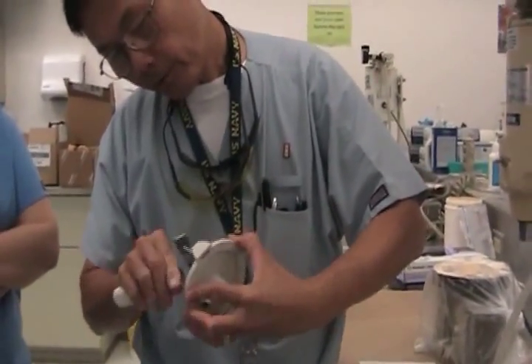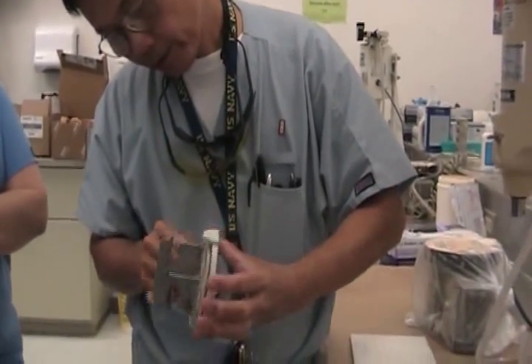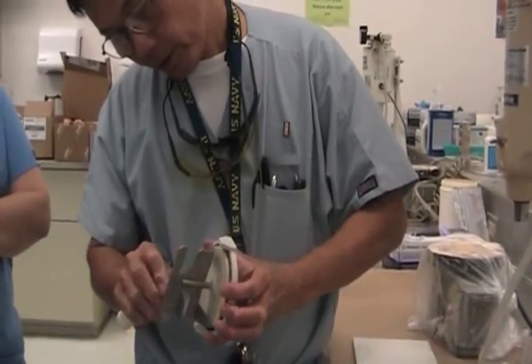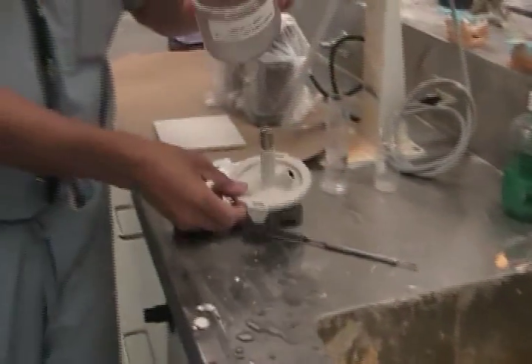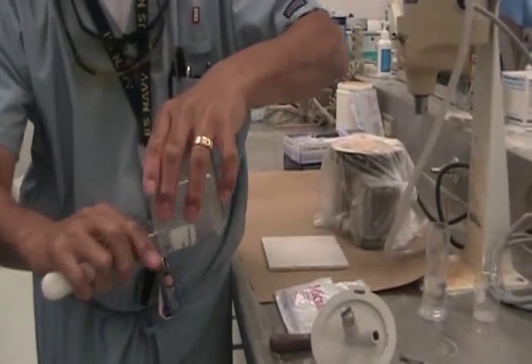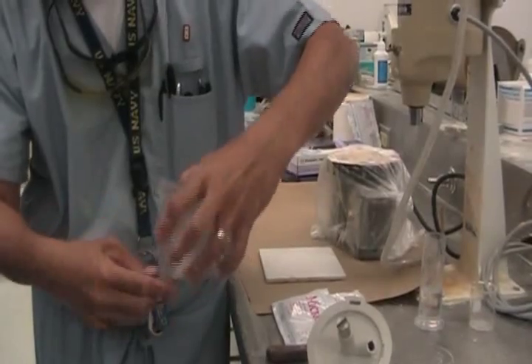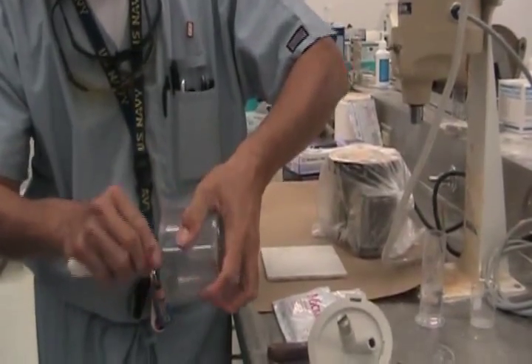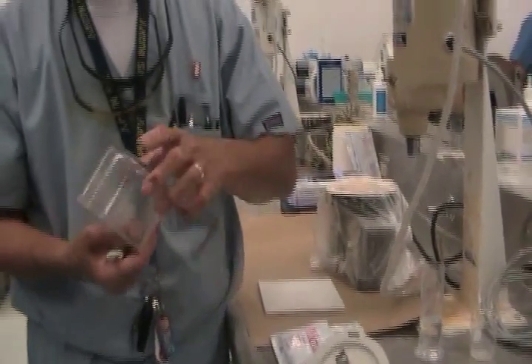Even at the O-ring side — if you take this O-ring and let stone build up on it, you're getting it in your margin. It's happened to me and I don't want it to happen again. Even here — see it? Take the back of your knife so you don't scratch your beautiful bowl too much. Alright, this is good. Good to go.